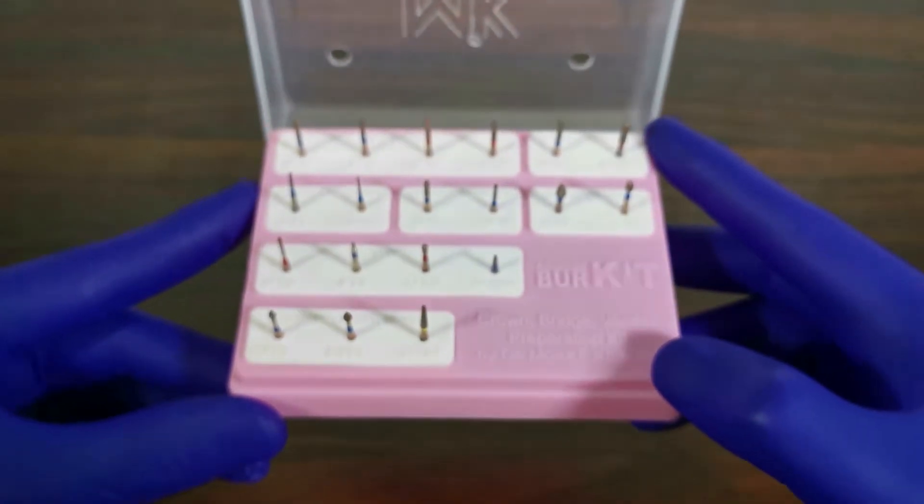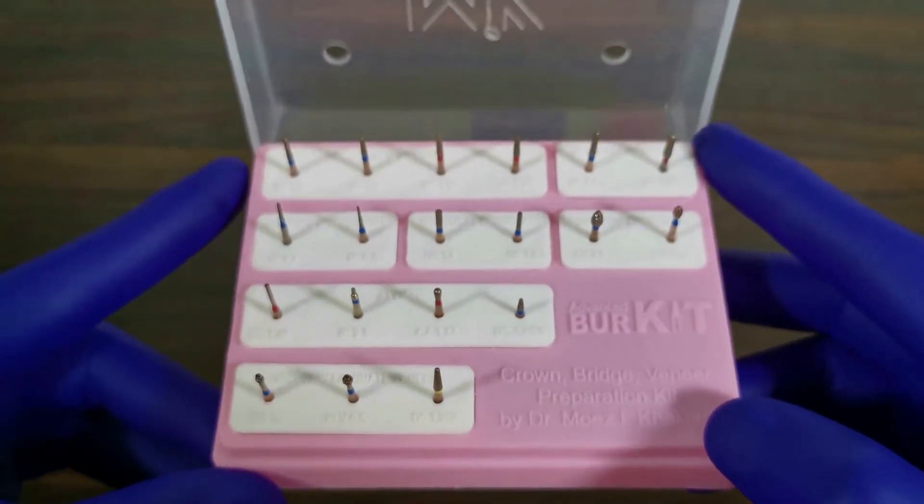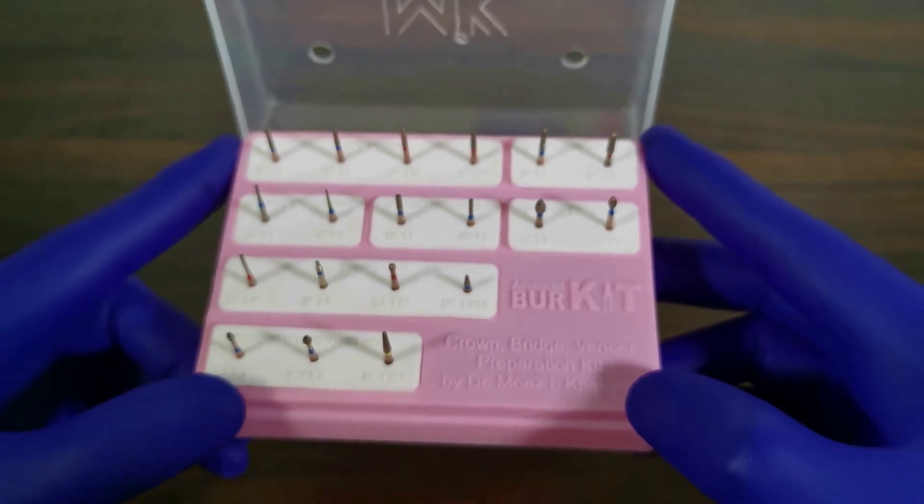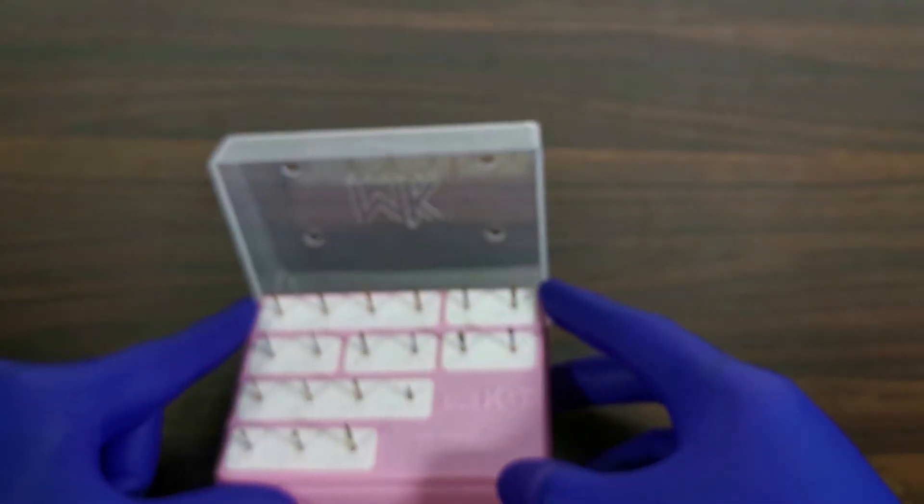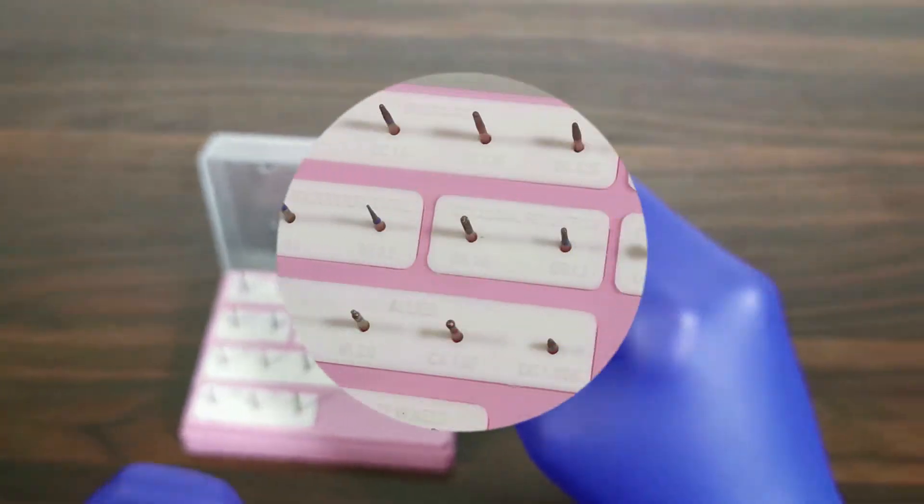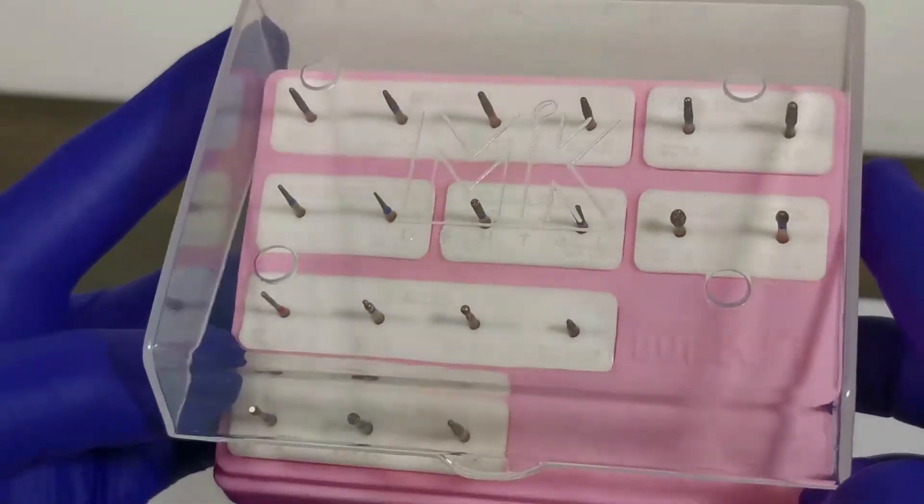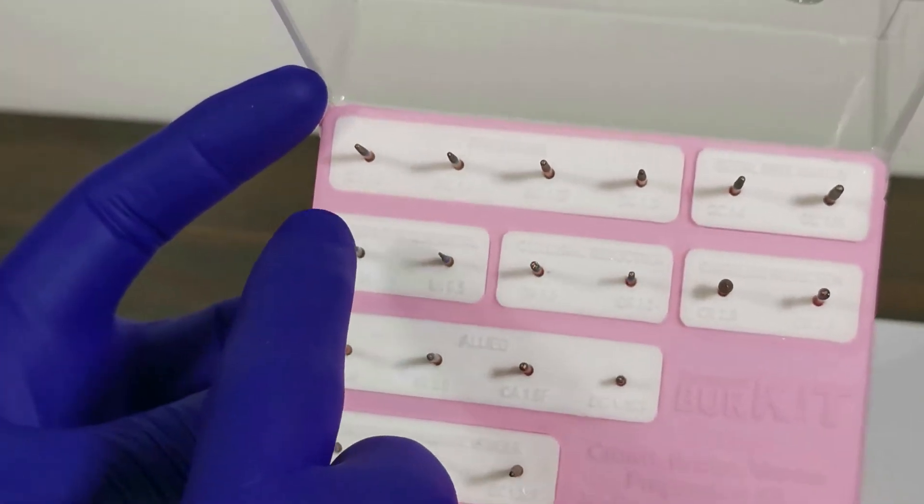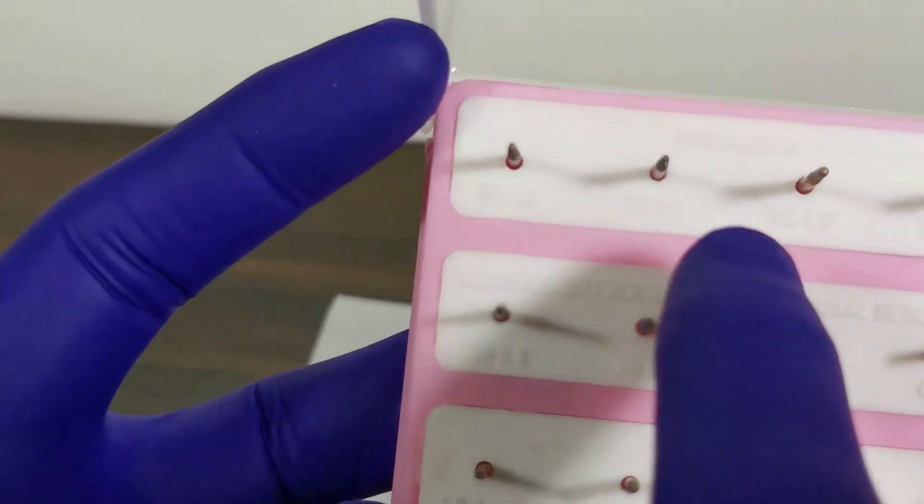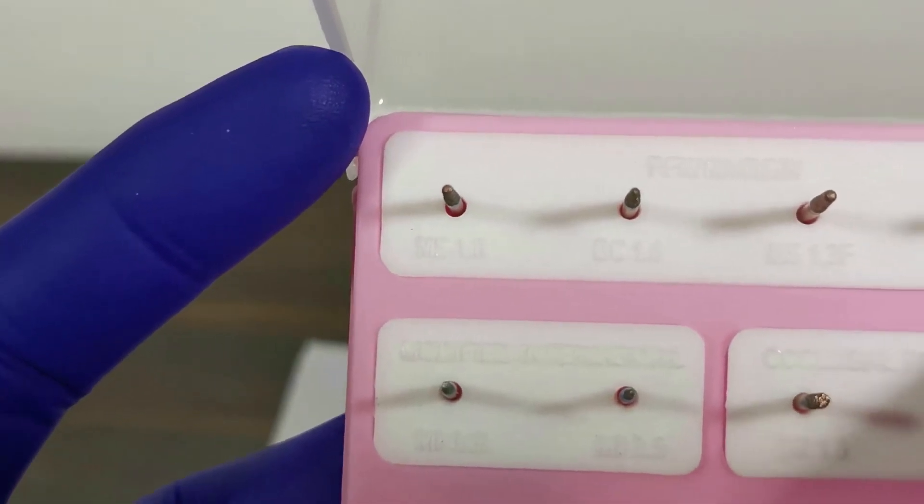Described next are individual burrs in the kit with their design concept and protocol for use. Stage 1, Episode 1: PFM Margin 1.